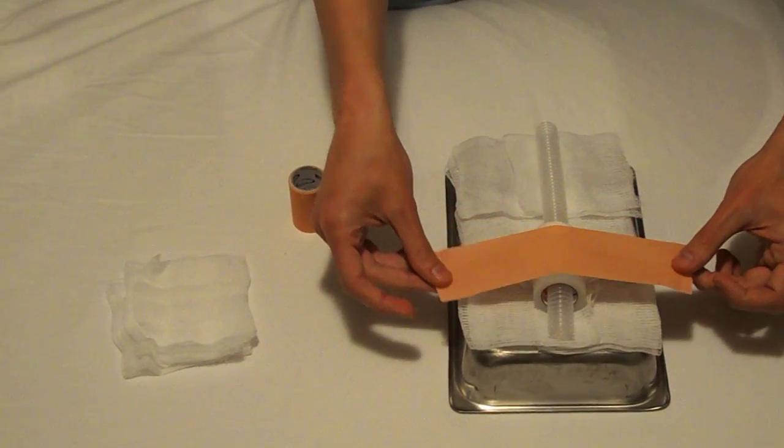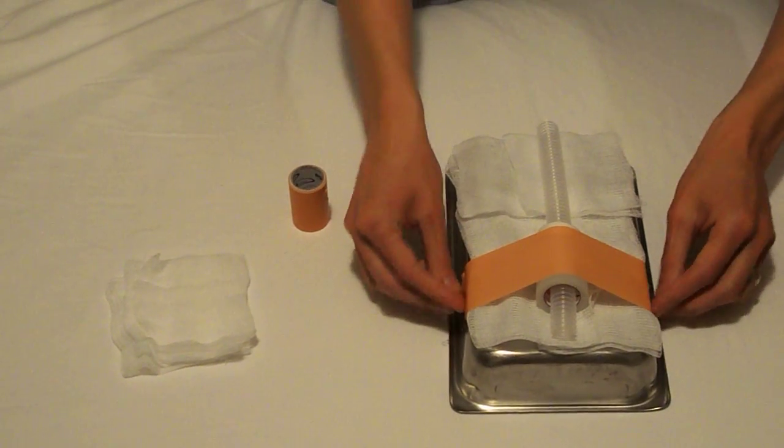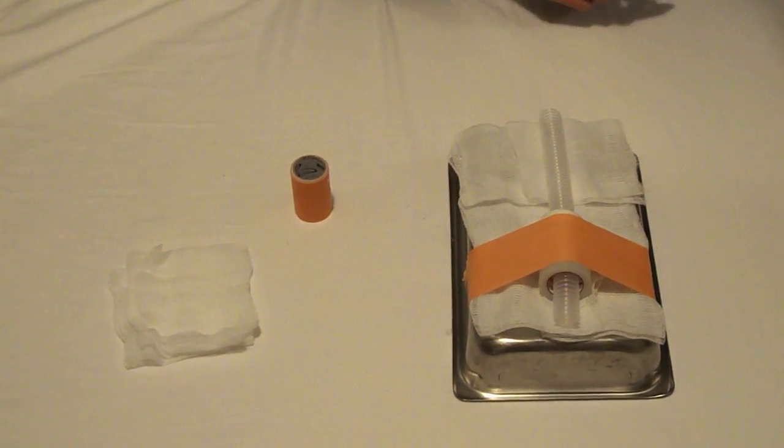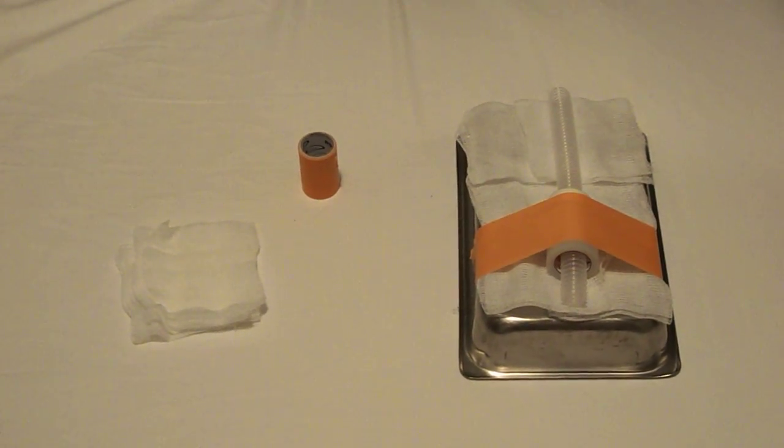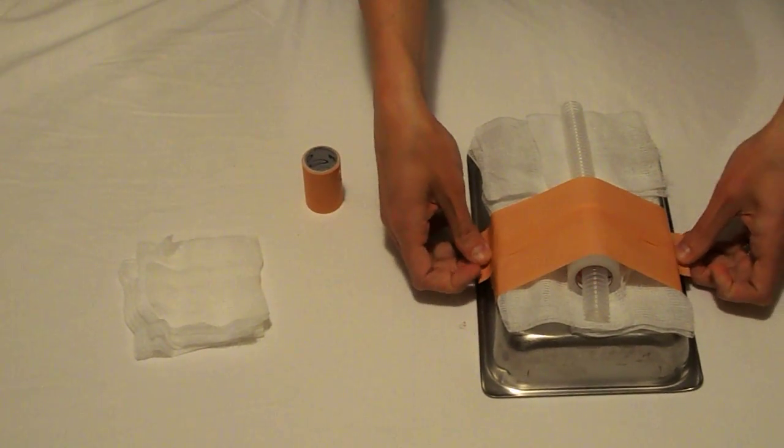So I'll put that piece of tape on first and you can just secure it there and then put additional pieces of tape on to create the skin.